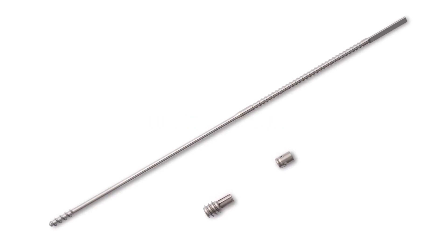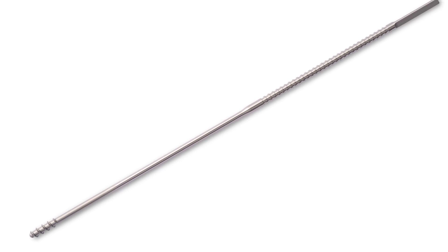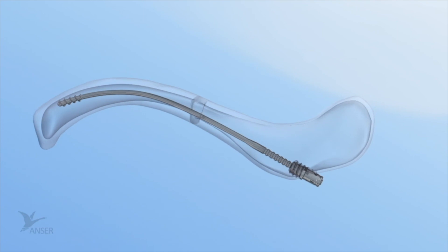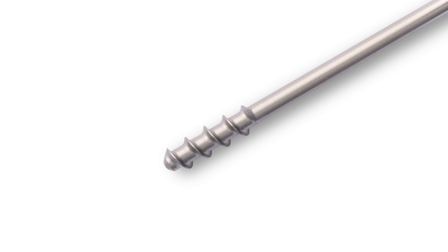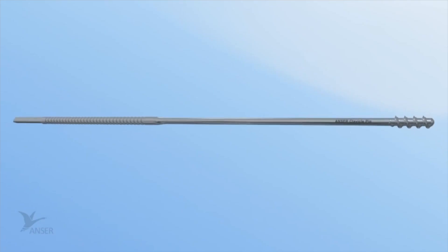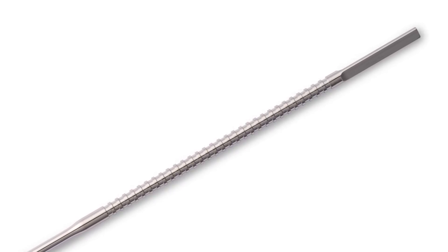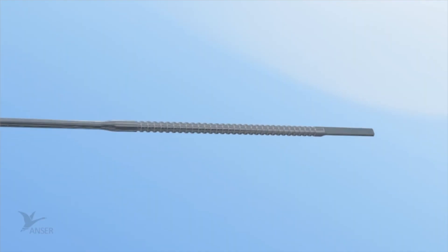The Anser clavicle pin set is made up of three different parts: the Anser clavicle pin, the Anser lateral fixation device, and the Anser end cap. The Anser clavicle pin consists of a 2.2 millimeter flexible pin fabricated from a titanium aluminum vanadium alloy. It is flexible to follow the contour of the clavicle and rigid to maintain alignment. On the medial side, the pin has two distinct features: a blunt tip which helps prevent perforation when advancing through the intramedullary canal, and a threaded tip that anchors itself against the cortical bone of the medial fracture element creating the medial fixation point by friction. On the lateral side, the Anser clavicle pin has a plurality of indentations used to determine the optimal and patient-specific length of the pin intraoperatively, making it a one-size-fits-all principle.